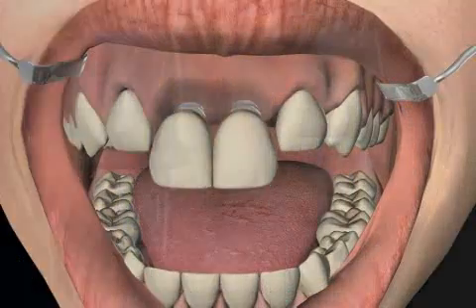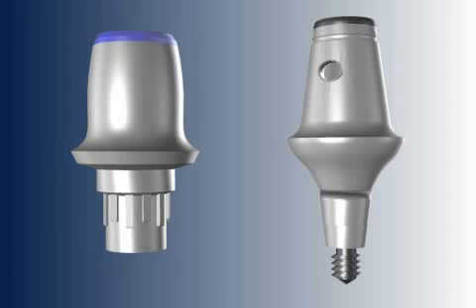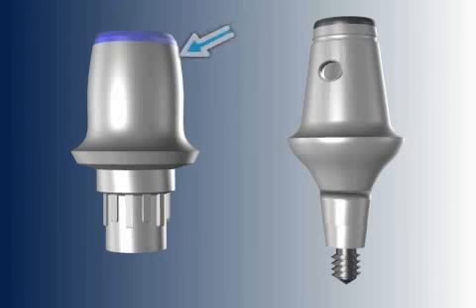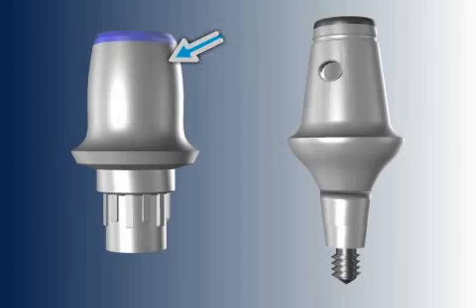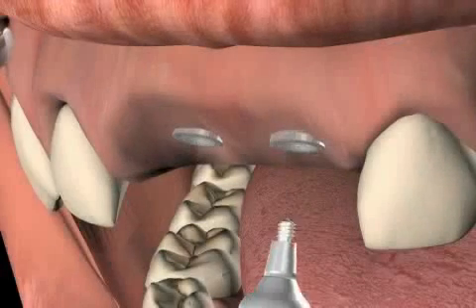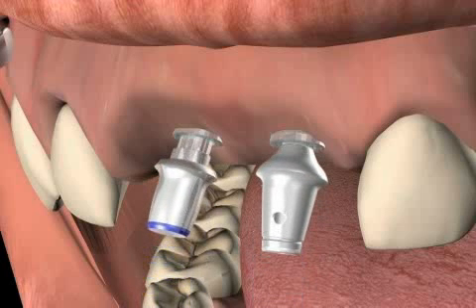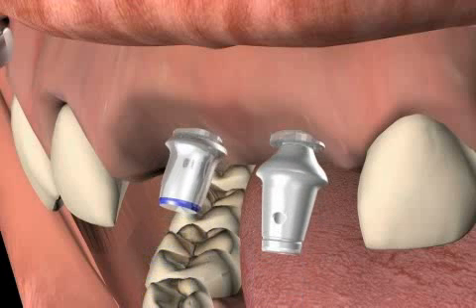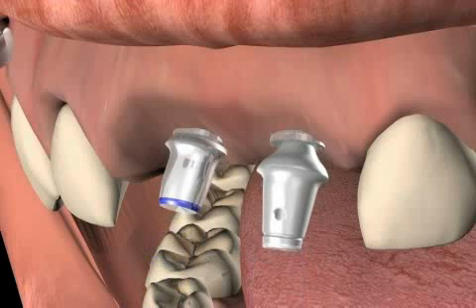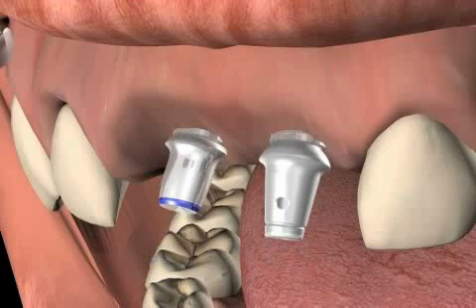There are different types of abutment or implant links. We usually distinguish between two kinds: those equipped with anti-rotation protection and those without. Anti-rotation protection means that the abutment only lines up with the implant in a certain position. The advantage of this type of link is easier handling in cases of implant prosthetic work.